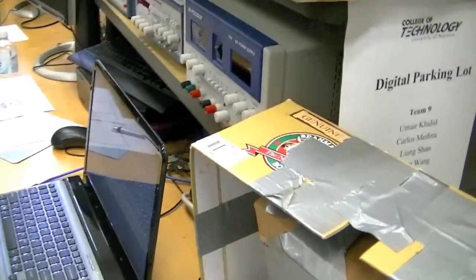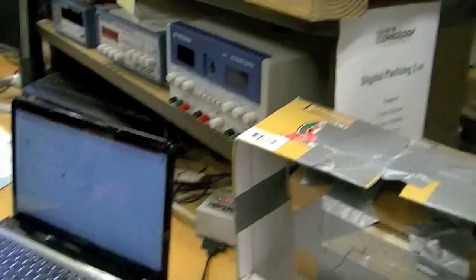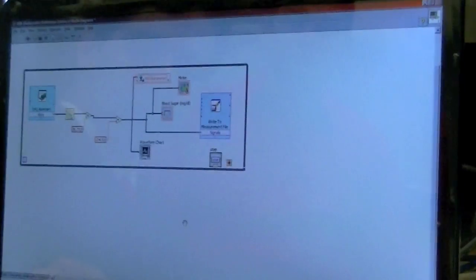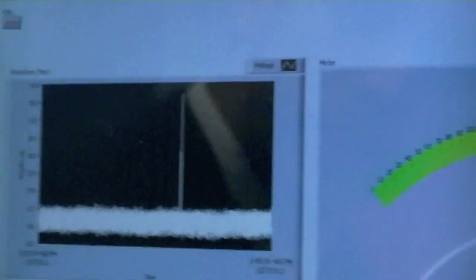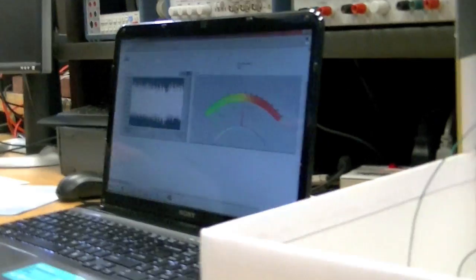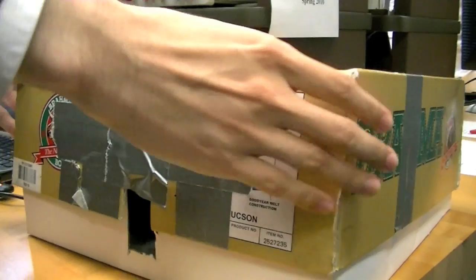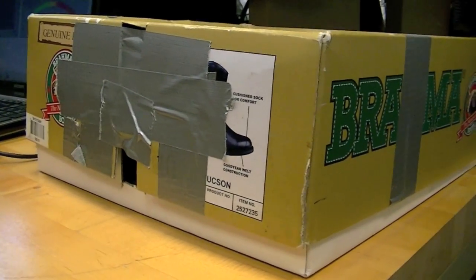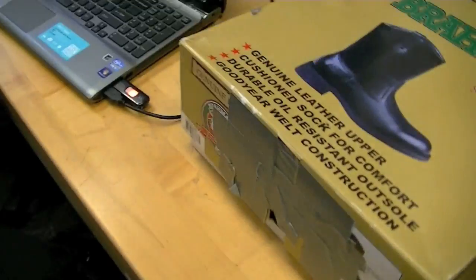Based on the light that's left over, we turn that into a formula. We use a regression analysis based on samples that we acquired over time, and basically what we have here is a display of blood sugar. We have to make it as controlled as possible, because this is a light detector that detects all light.